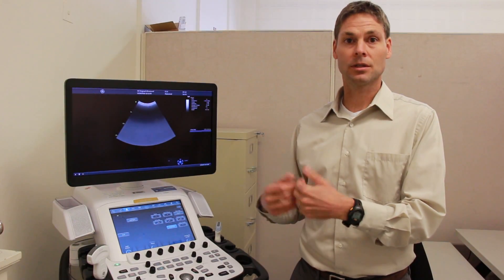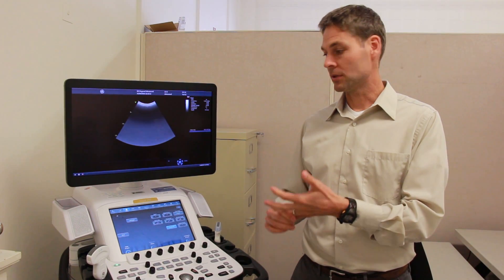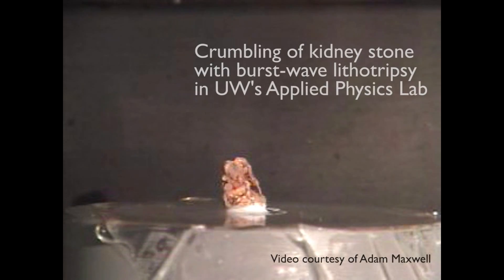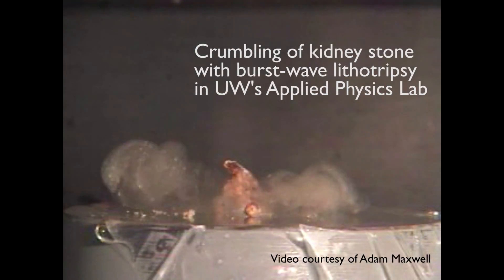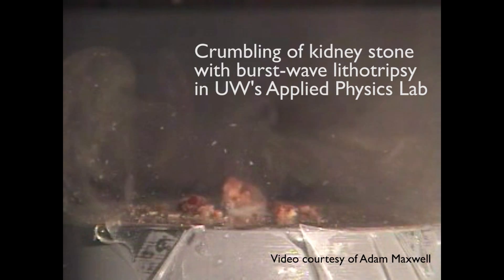We've just recently got a grant that in addition to imaging and repositioning the stones, we're going to actually break the stones. This would replace a lithotriptor, not a diagnostic ultrasound machine, but a large machine used to send shock waves that break the stone. Instead, we've made a small system.